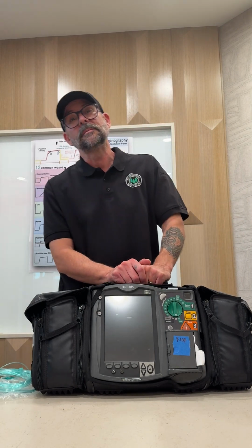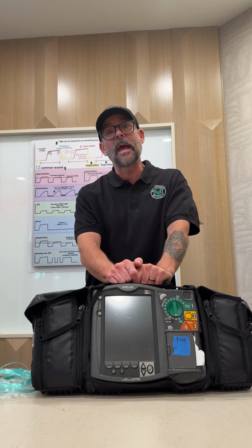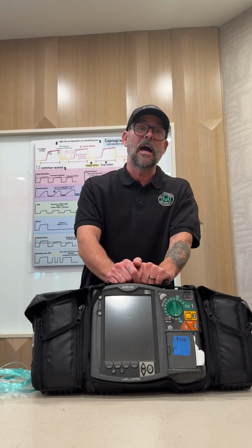Hi, my name is Mark with Wilderness Medics, and today we are going to talk about end-tidal CO2, or capnography, waveform capnography to be exact.